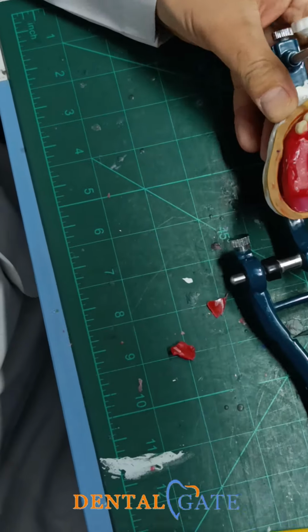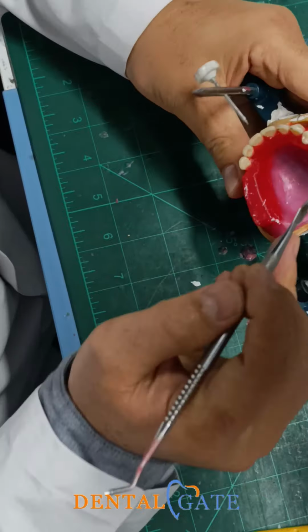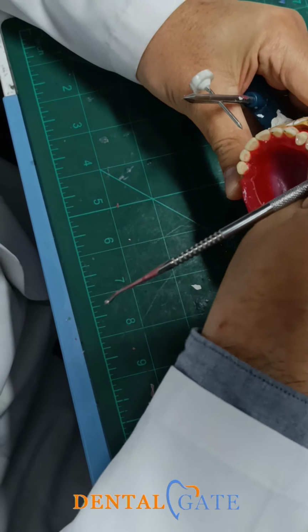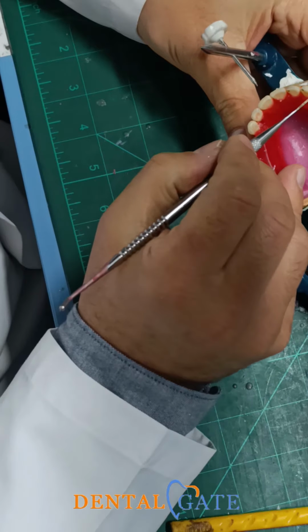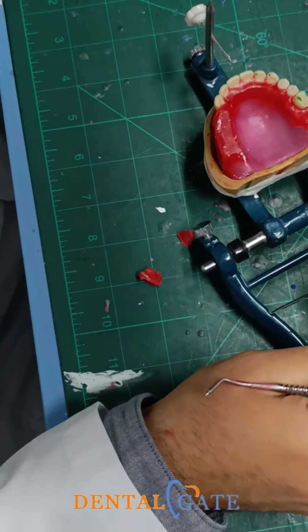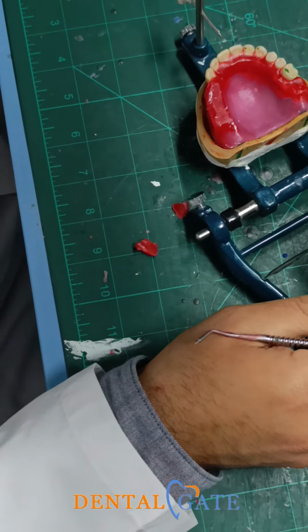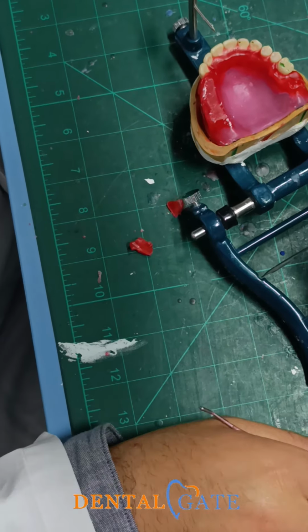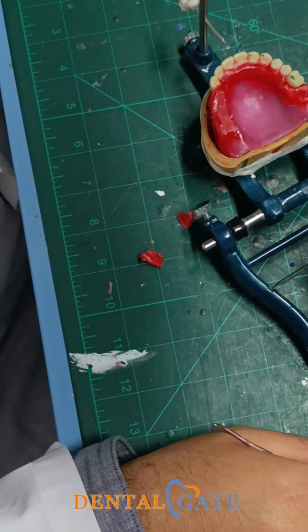So you can see where the contact area is on the posterior. It should be the other occlusal third. That's right? We leave the tiny space between the first and canine. We don't leave any space between the others. No. This is my objective. Don't leave any space. But for the beginner, for the first practice, there's permission to make that.